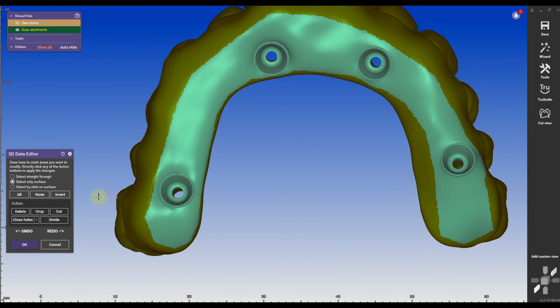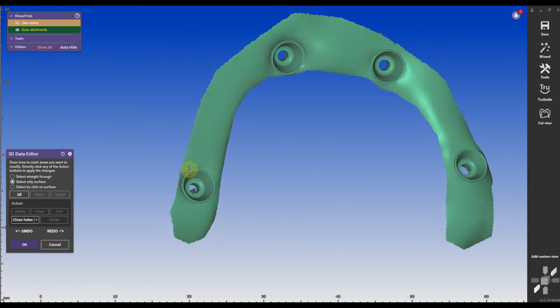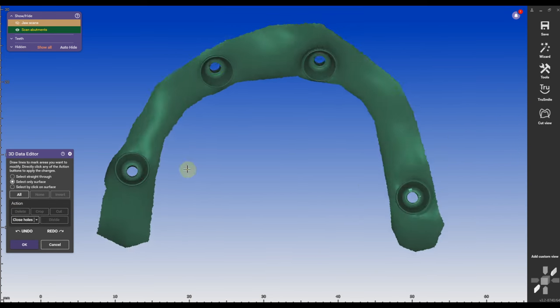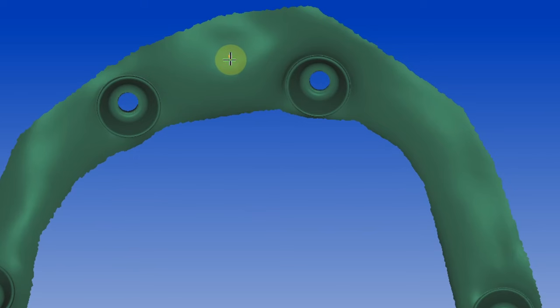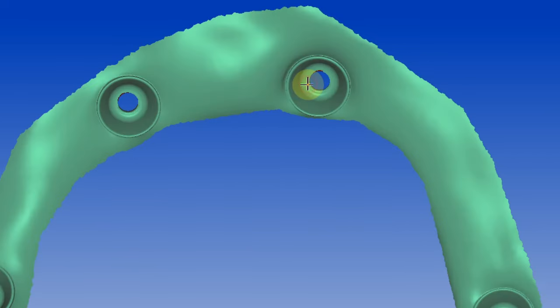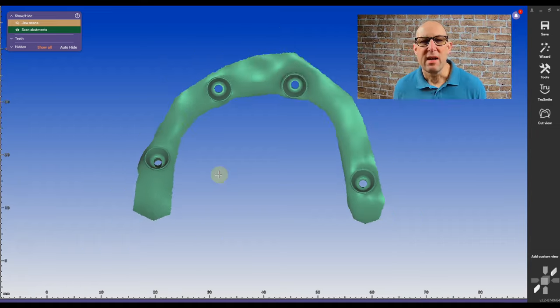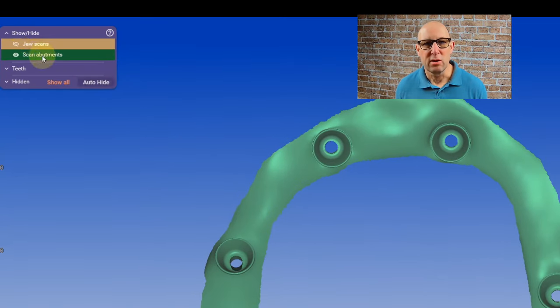I'm going to turn it around and if there are a little bit of floaters I can modify those. I'm going to invert the triangle so I have a positive side. Then I'm going to do the same thing with the jaw scan.